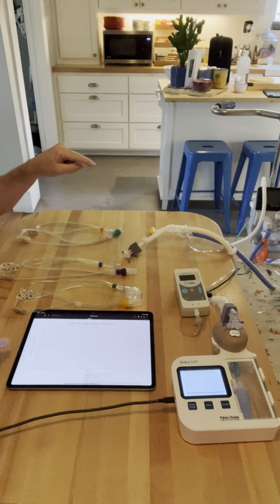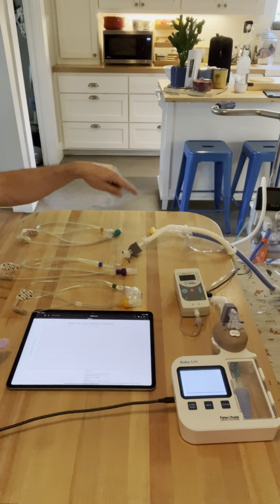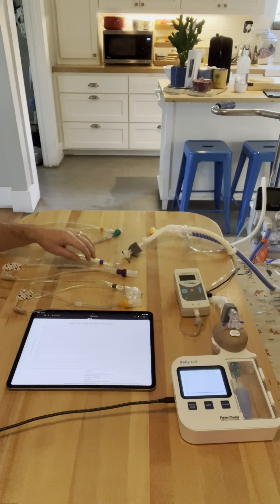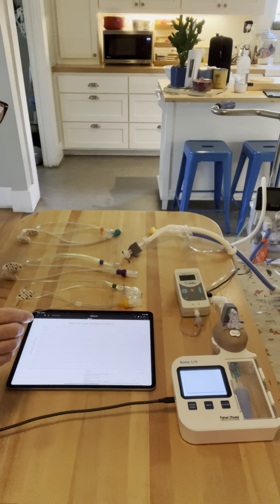We'll cover CPAP interfaces, use that as a baseline so that we can do a comparison between all of the cannulas, and I've sized the Optiflow with their corresponding RAM cannula, and we'll put that onto my test baby. And then you all can see the data, and we'll go from there. So let me orient you on what I have going on.